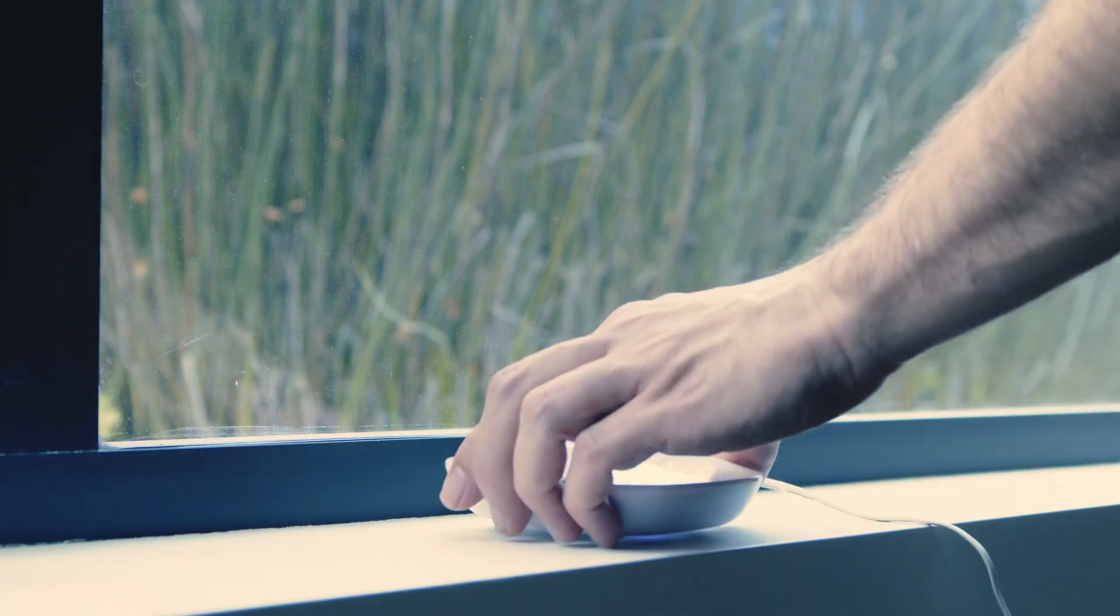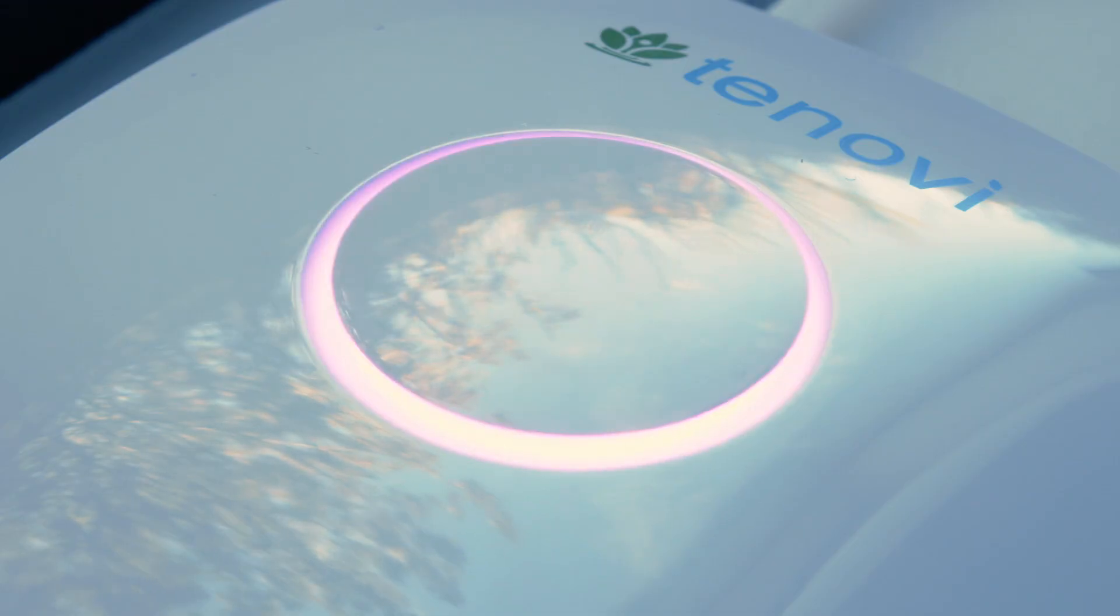If the LED ring pulses blue and does not turn red, move the Gateway close to a window and try again.